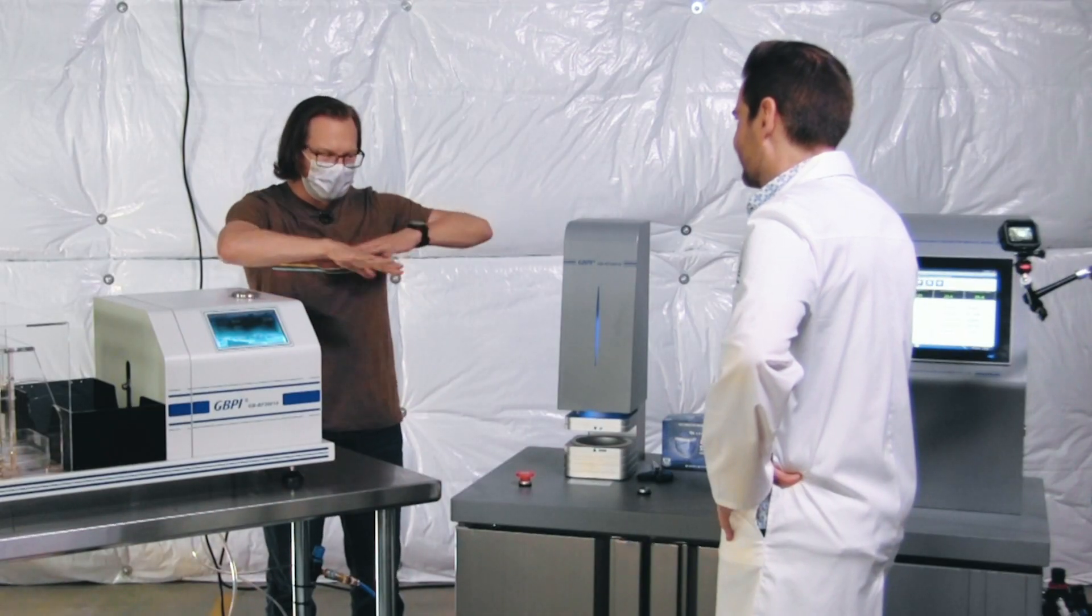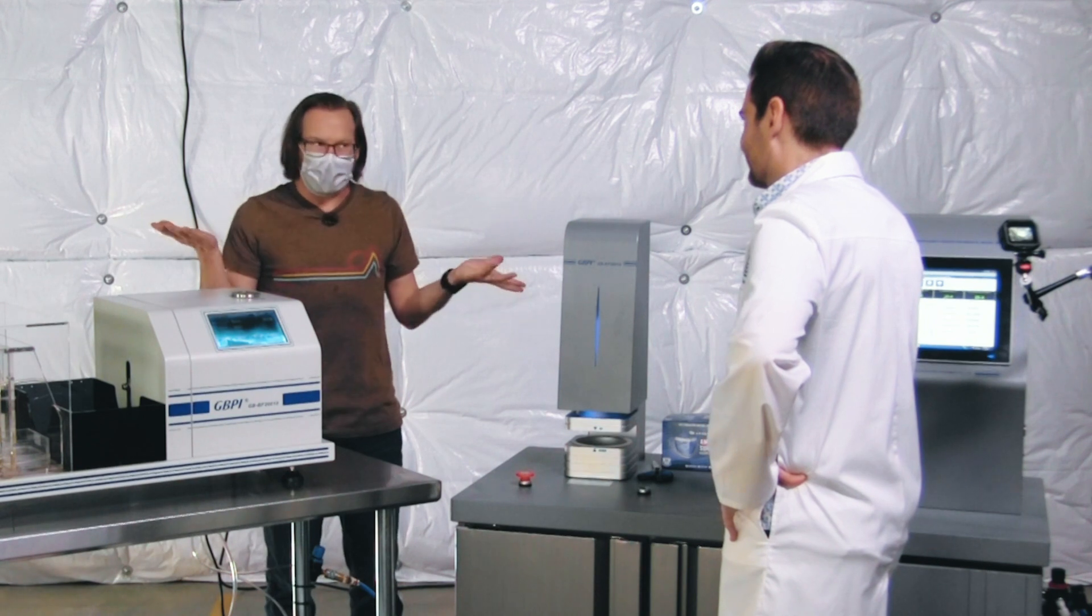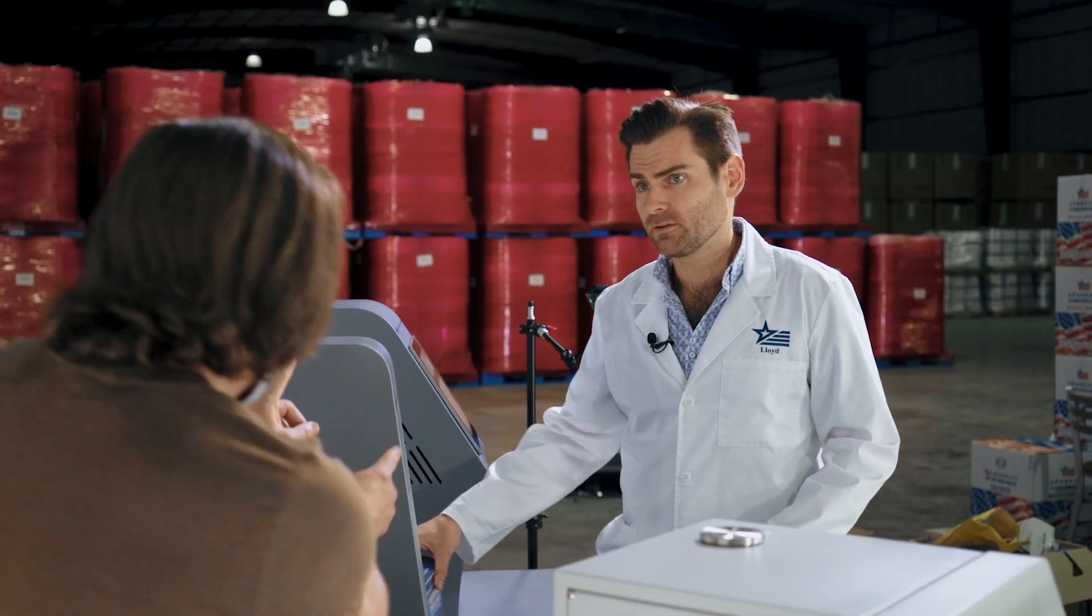I know in theory there's no difference in the materials from an N95 versus a surgical mask. So I feel like we should rerun surgical mask and try it against an N95, see if there's any difference. Sure. What was the machine again?